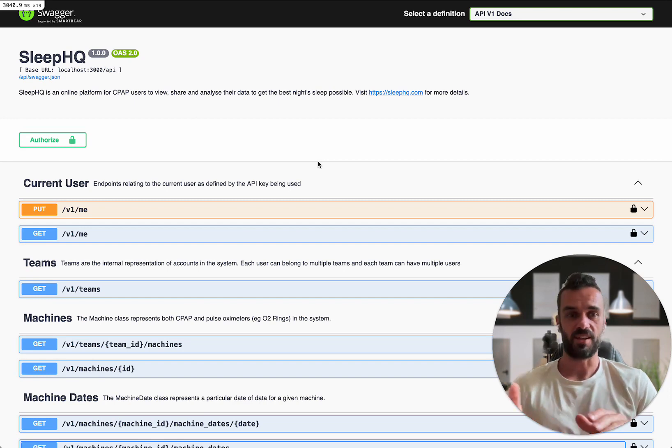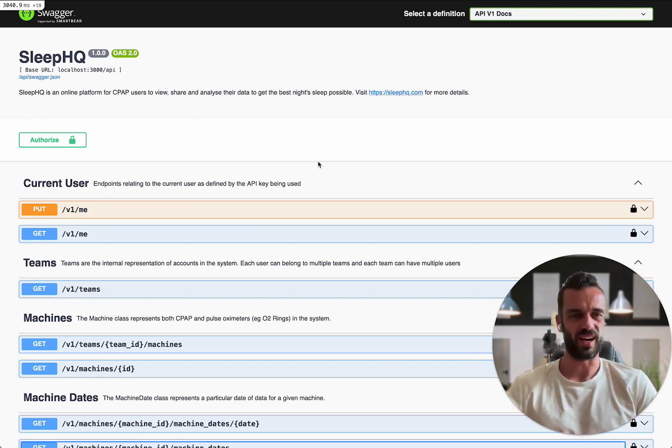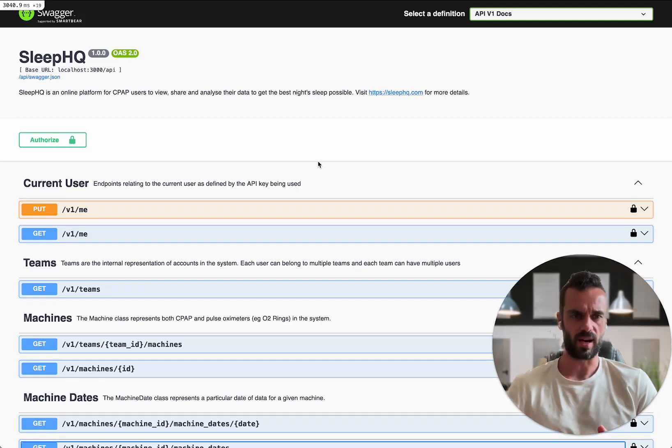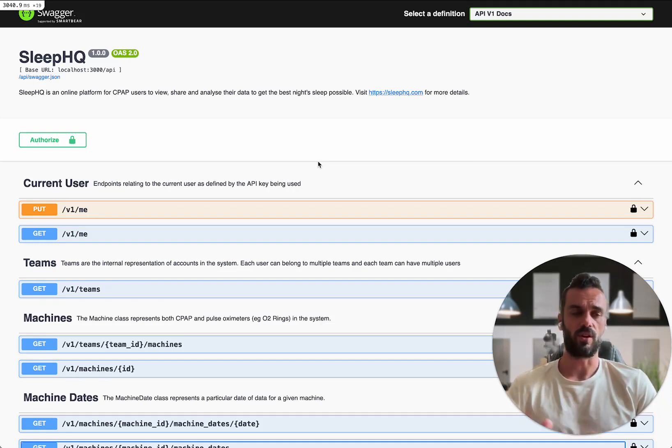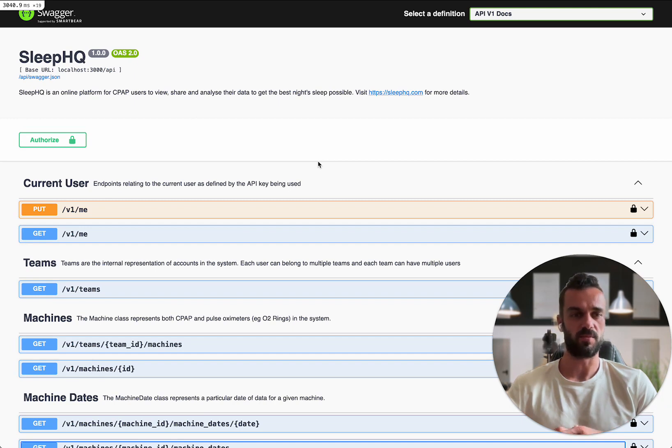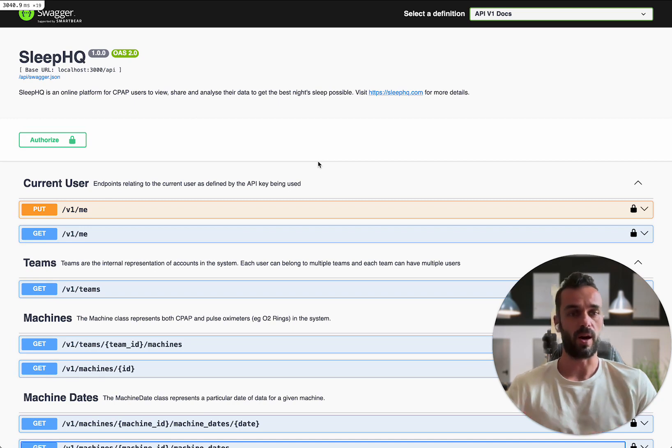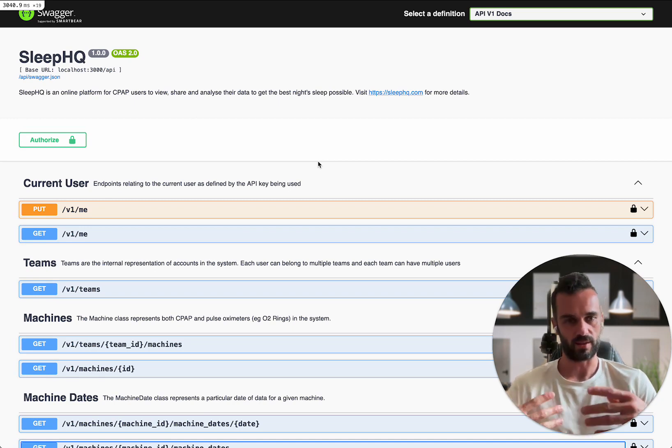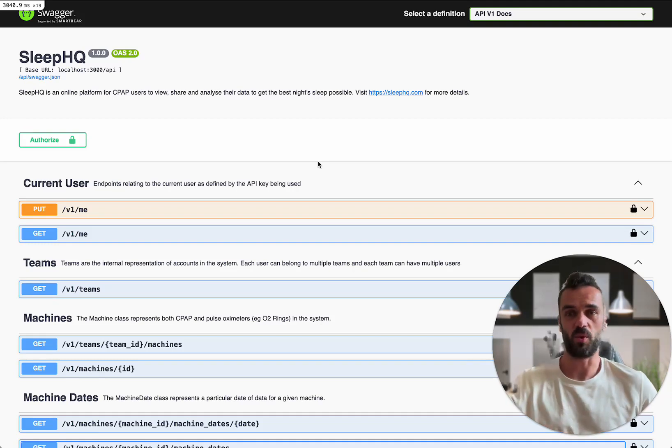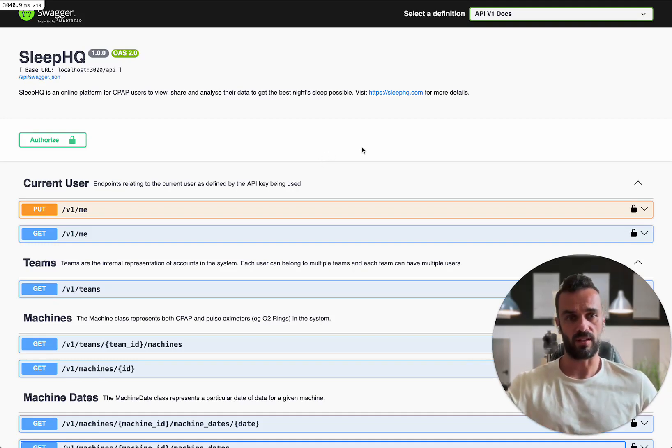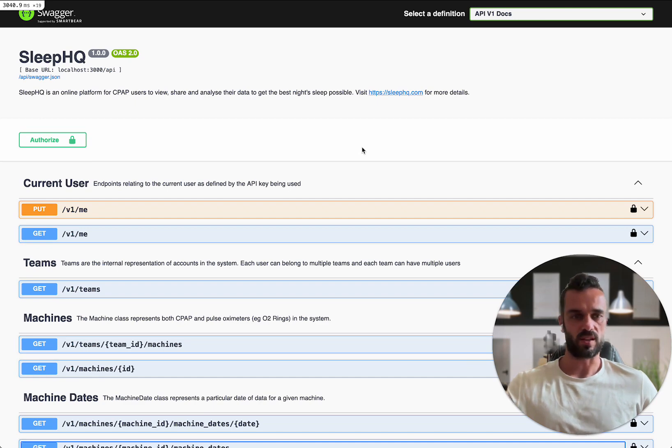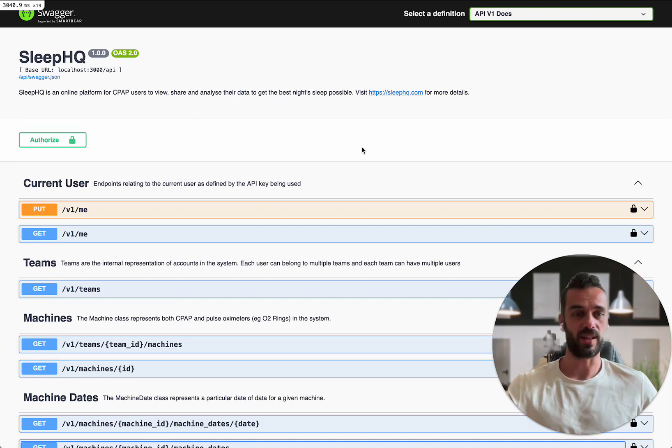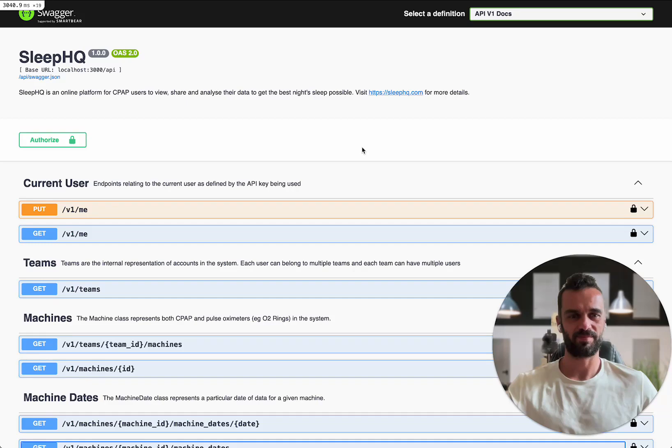So there you have it. That's a very quick overview of the API itself and some of the things that you're going to be able to do with it. But really, what we want to do here is throw this one over to the community and see what you guys can do because that's the whole point of having these kind of APIs so that we can open up the data that's in your account and then you can start to build on top of it and take it wherever you want to take it. I'm really excited to kind of see where this goes. It's just the first step in a process but I'm really excited to get it out there. So anyway, let me know what you think guys and hopefully we'll have it in your hands very soon. All right. I'll talk to you soon.